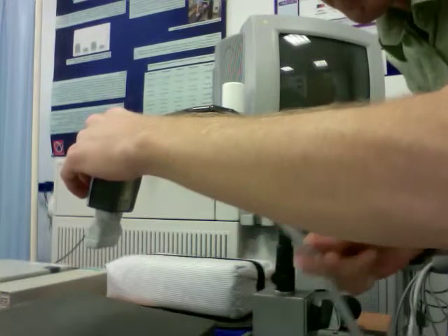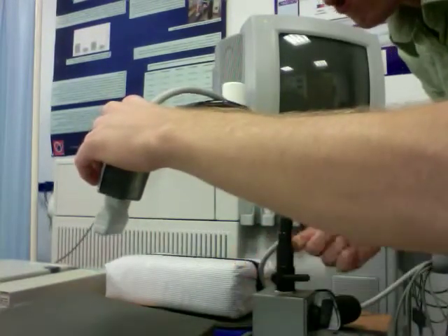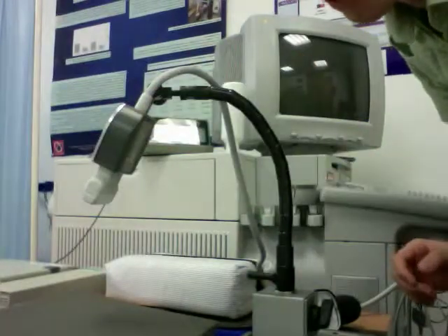This little knob here, if you can see that, tightens a wire on the inside of this contraption that essentially stiffens the whole thing, and it holds it quite nicely.